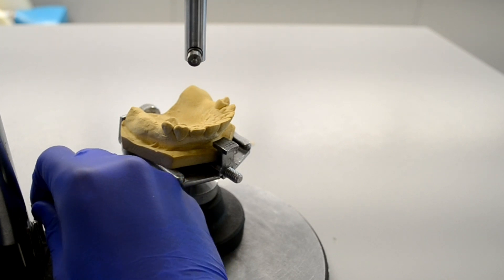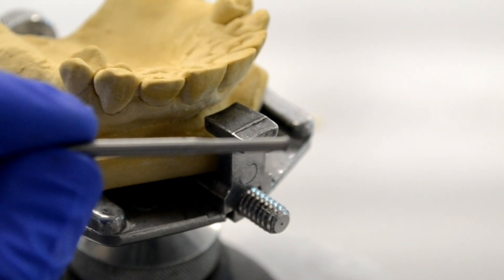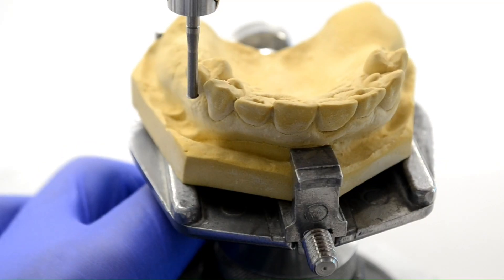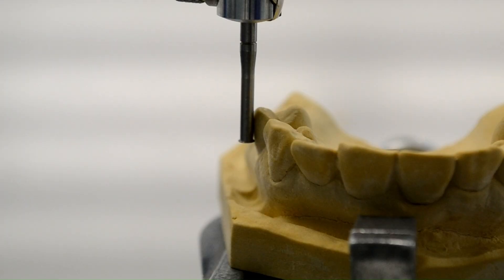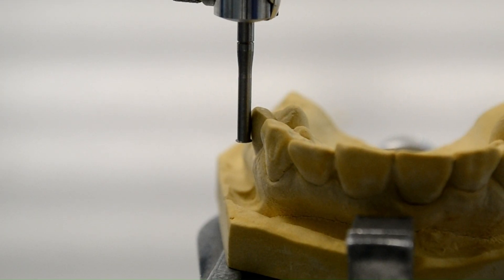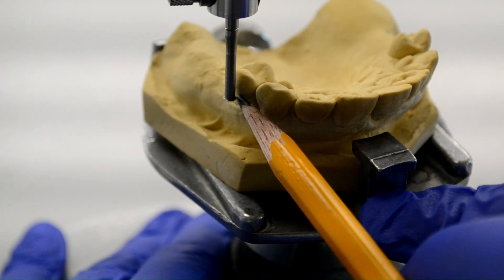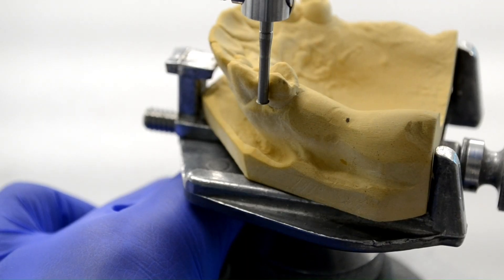Once we are satisfied with the path of draw, it's time to switch out the analyzing rod for the 0.01 inch undercut gauge. We will now attempt to find those undercuts that we decided we needed in our initial plan. In order to identify the location of an undercut, the undercut gauge needs to contact the tooth at the shank and the disc. The undercut is located at the point of contact of the disc with the tooth surface. To mark that undercut, the cast is pushed away slightly and a pencil mark is made at the contact point of the undercut gauge, marking the undercut location.